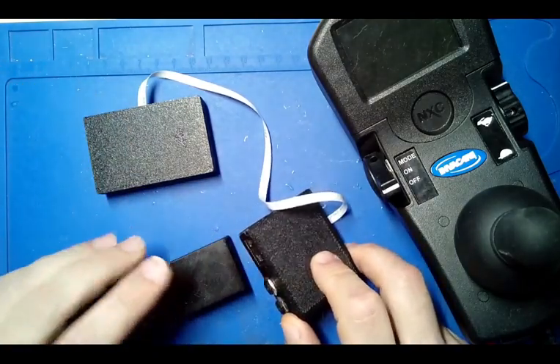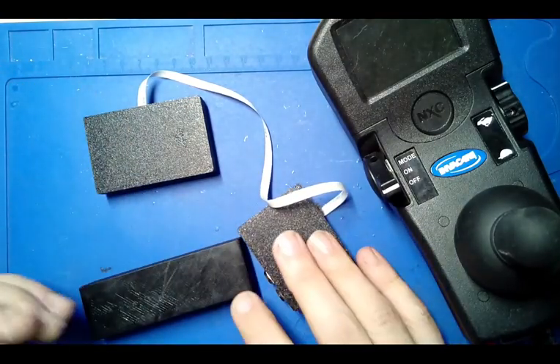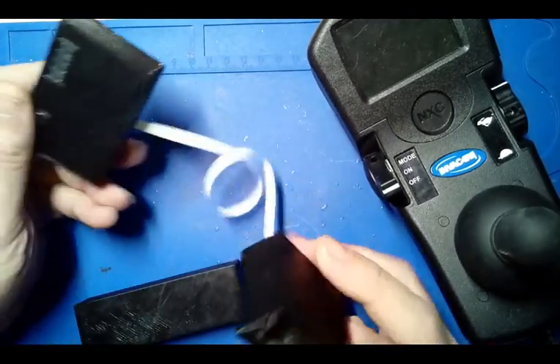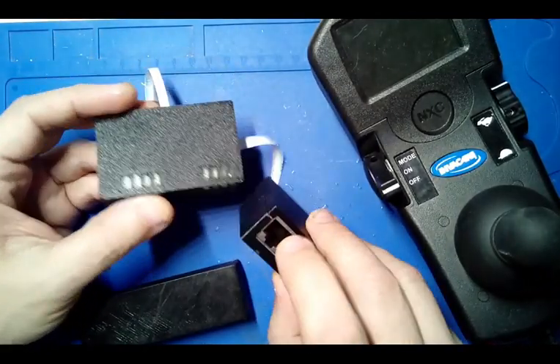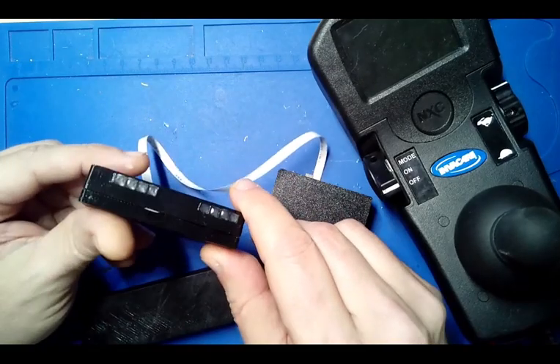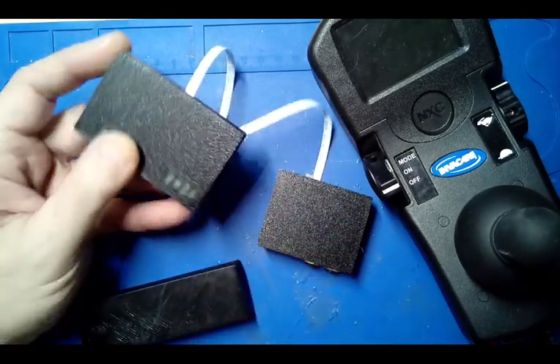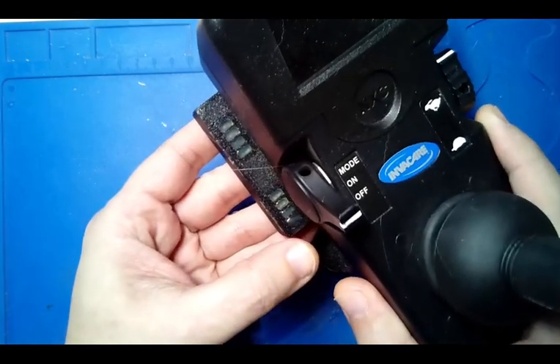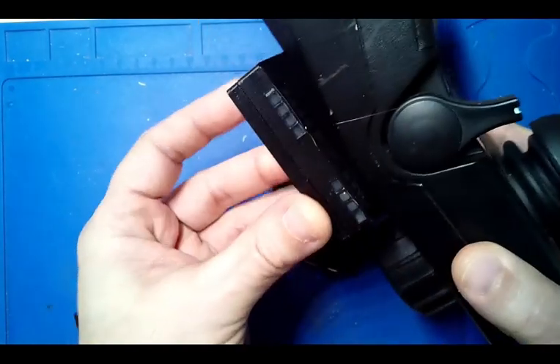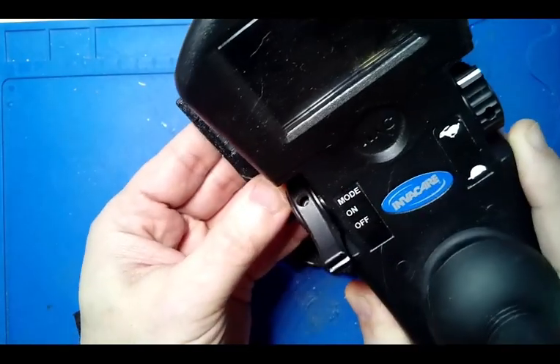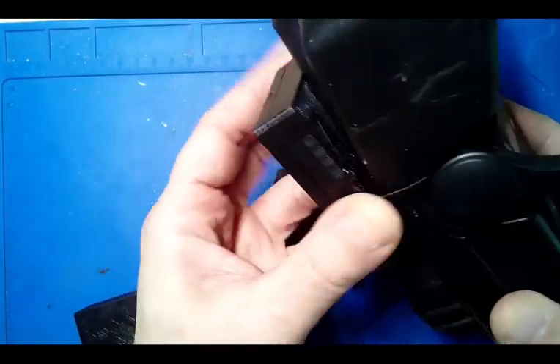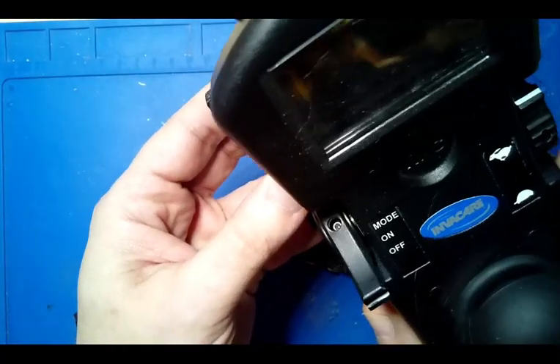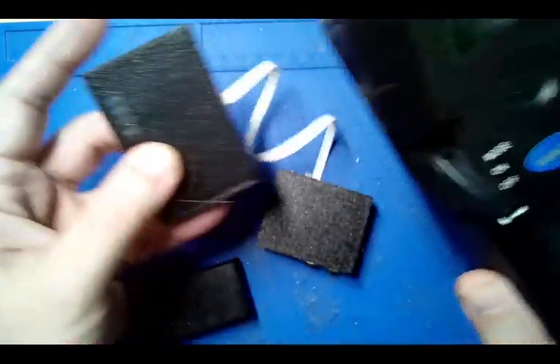Now everything is in three parts. You have the display unit part which is here, and this will get mounted to the bottom of the power chair stick. It's about as small as I can make it at this point and still have things that are feasible.